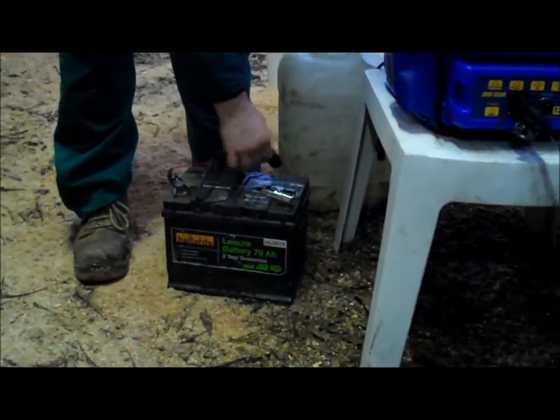The wee battery packs that you get for using with the Duo Scan rechargeable packs, you can also use them for running for about 6 or 7 hours or something. Red to positive, black to negative.